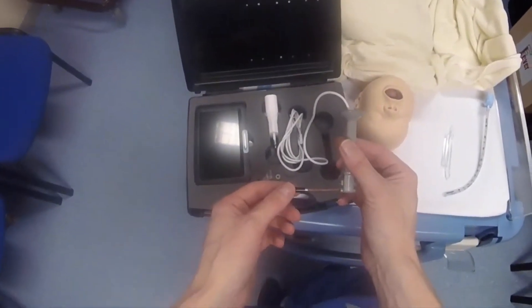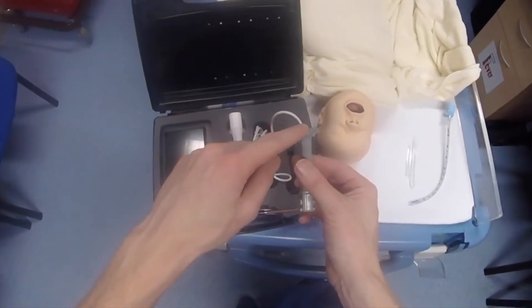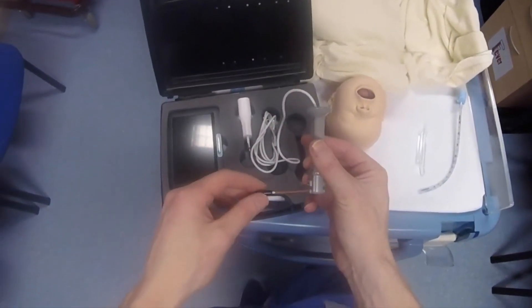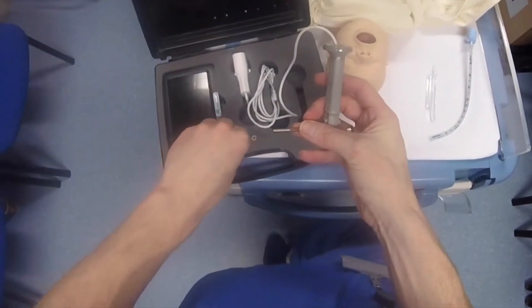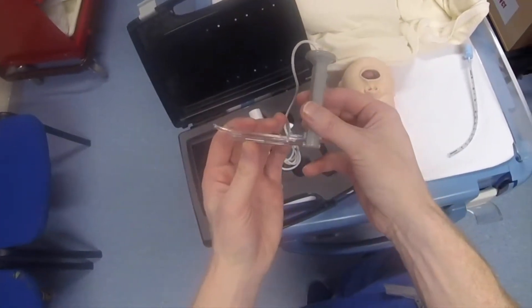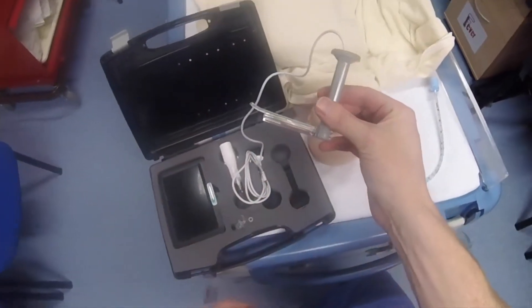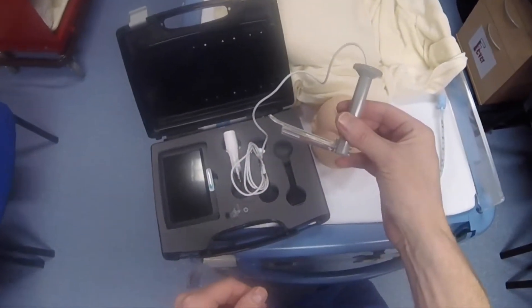It's based on the classical Miller-shaped blade design, and you've got this reusable video baton. The camera protector slips off, and then you've got this single-use disposable blade that simply clips and locks into place. This is disposed of, and the camera baton is used again.